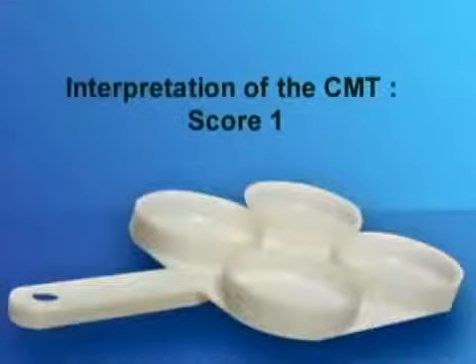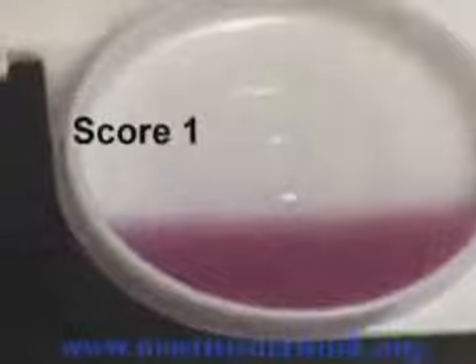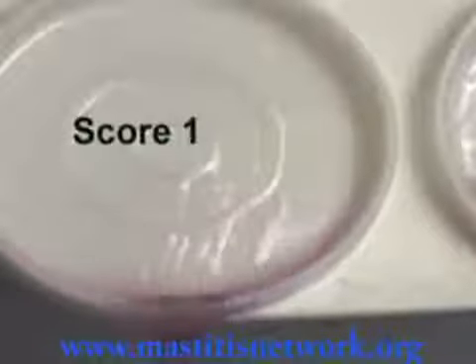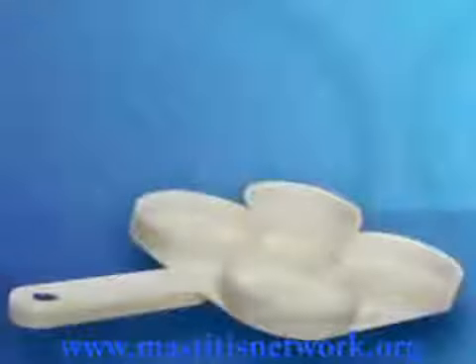And now, score 1 reaction. When rotating the paddle, the mixture swirls in the middle. If the rotating movement is stopped, the liquid covers the bottom of the cup. When pouring a score 1 mixture, it will drip out of the paddle gradually, despite some apparent thickening.